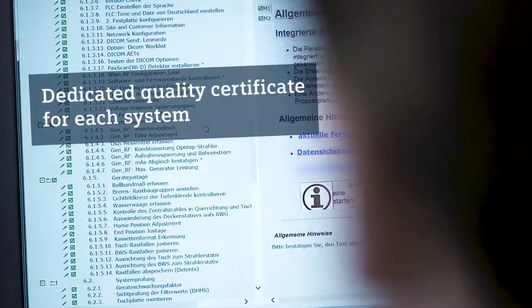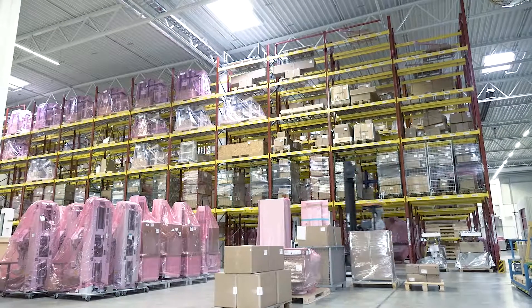Only if Multix Fusion Max has passed all tests with zero deviations, which we verify according to the dual control principle, and with an extra quality certificate will it be sent out to our customers.